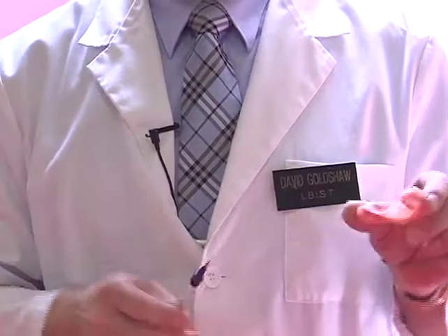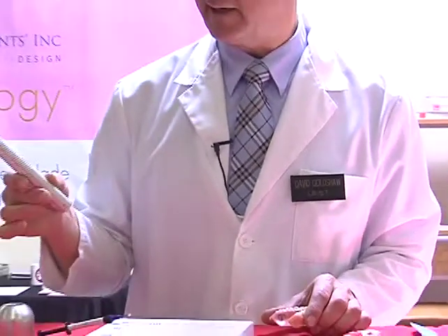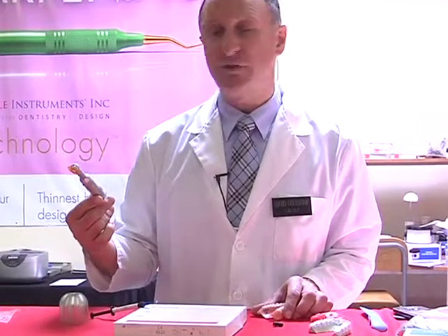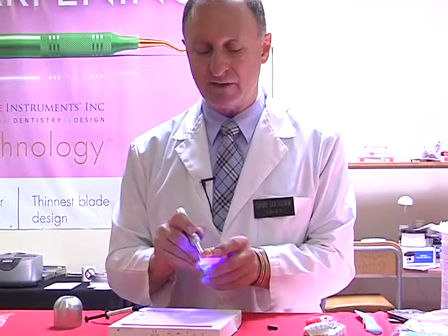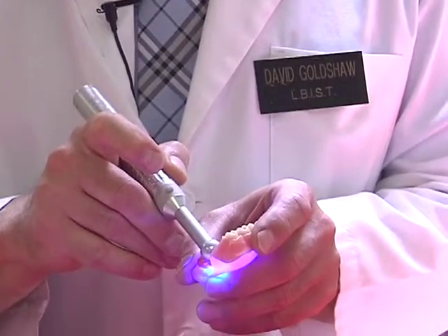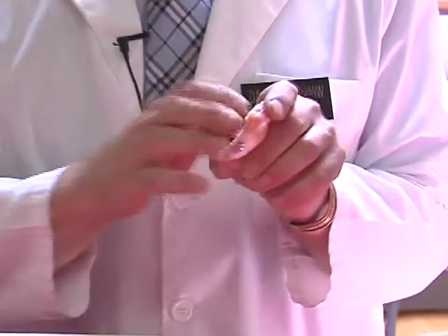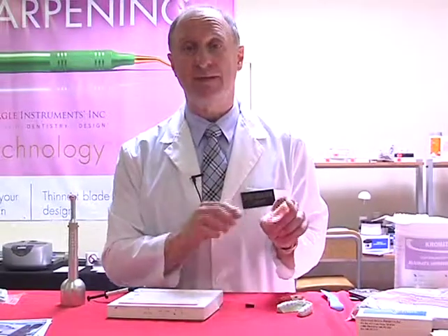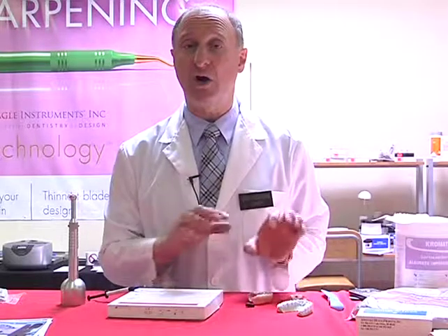Once that's done, we take hold of our light curing pen. And here I have a little curing light that comes from the company itself is called Spring Health. It's a cordless light. I then place this down over. I then cure normally for 20 seconds. Once it's then cured into place for the next 5 years, we have permanently marked the information onto that appliance, whether it be the denture, the mouthguard, the bleaching tray. So that's a simple way of how we can actually establish information onto the appliance.